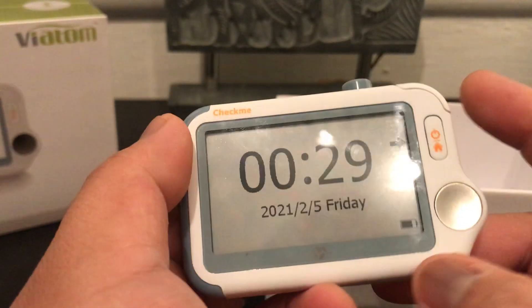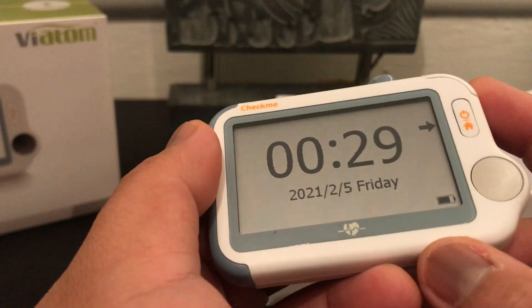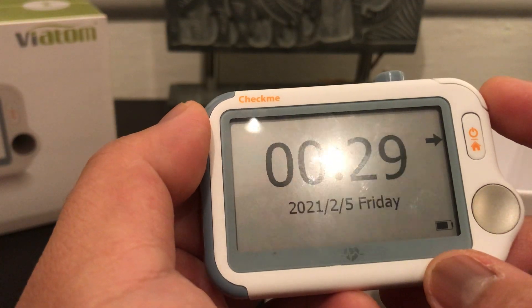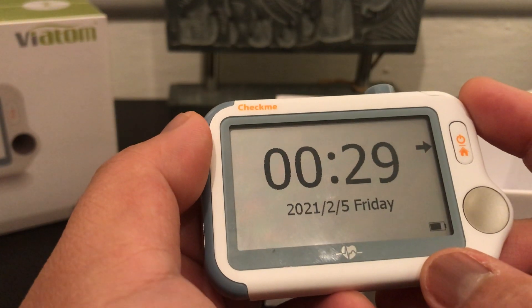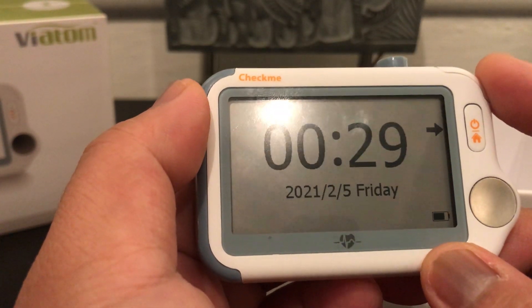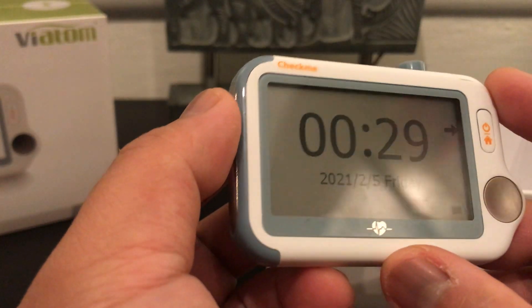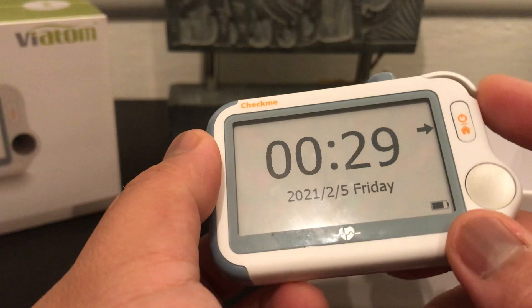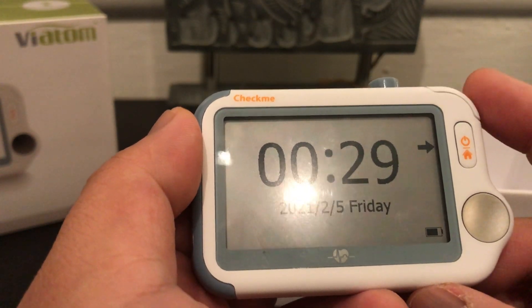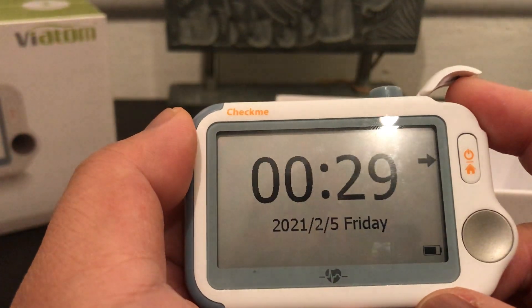Overall, this device is a great all-in-one device, especially if you're a patient with heart issues. You don't have to get an EKG each time you don't feel well — you just check your heart rhythm at home or on the go. As a disclaimer, always check with your physician if you're not feeling well, and always consult your physician regularly. This does not replace a regular health checkup.